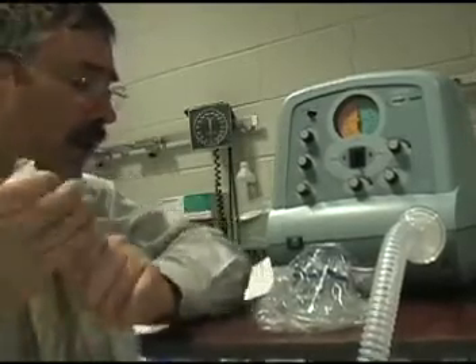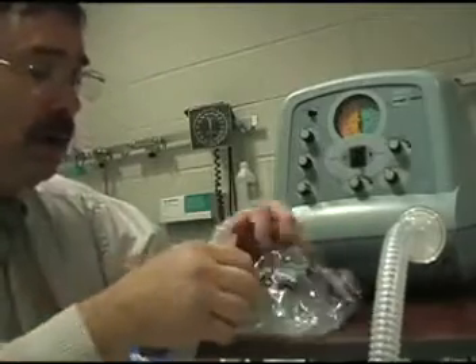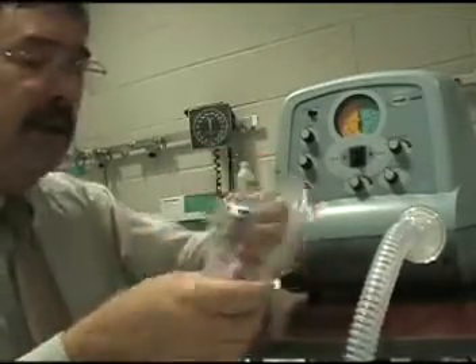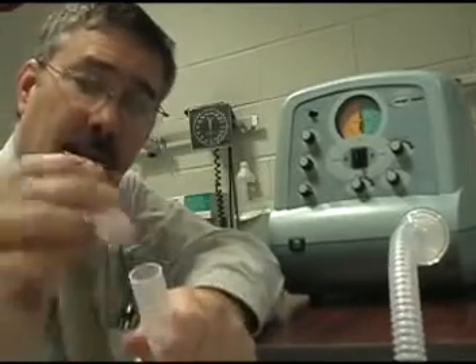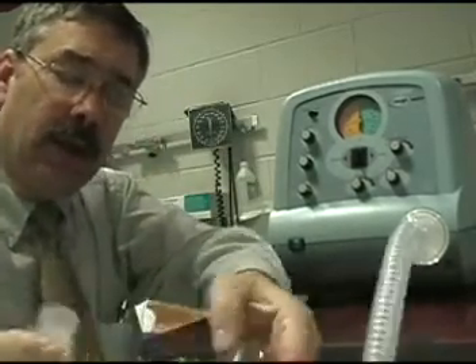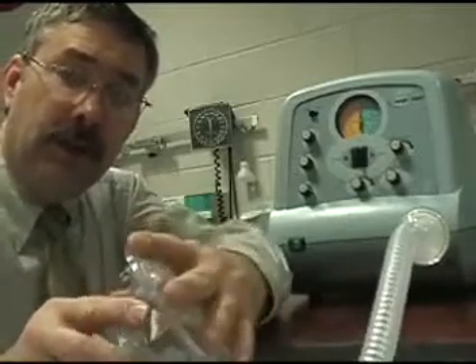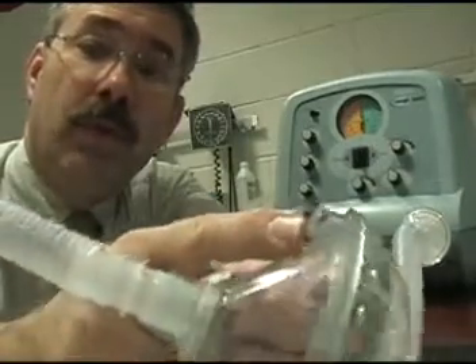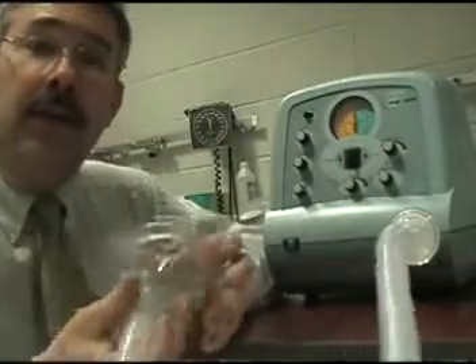Next is a mask — that's probably one of the ways you'll see the most. With this system you have a slight problem in that the mask and the tubing are the same size. So what comes with the machine is this little barrel connector, which fits right into your tubing and then into your mask. If you find that the mask cuff is a little bit too spongy, you can add a little air with a syringe through this little port right here and firm it up.